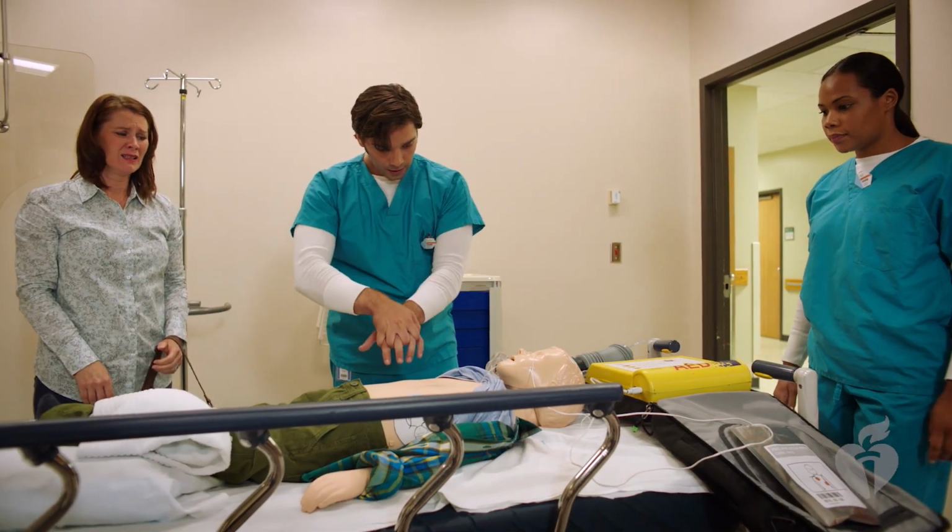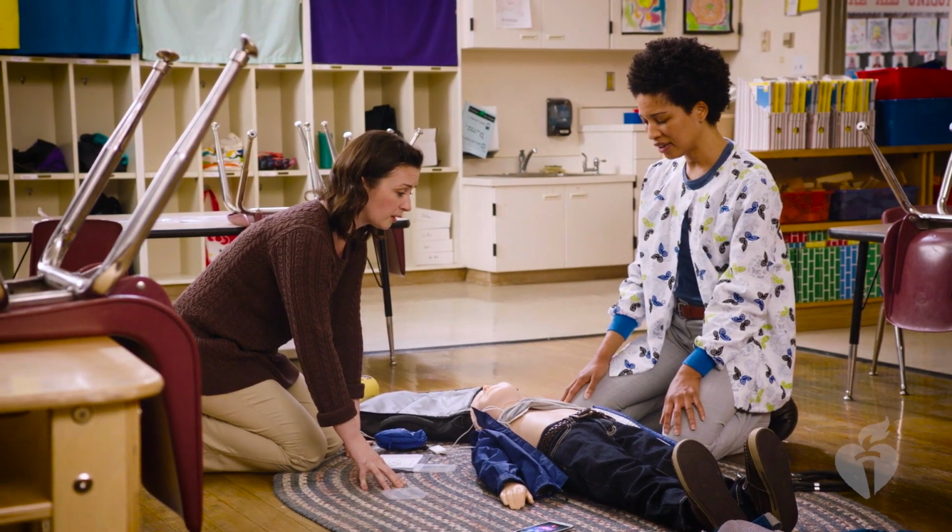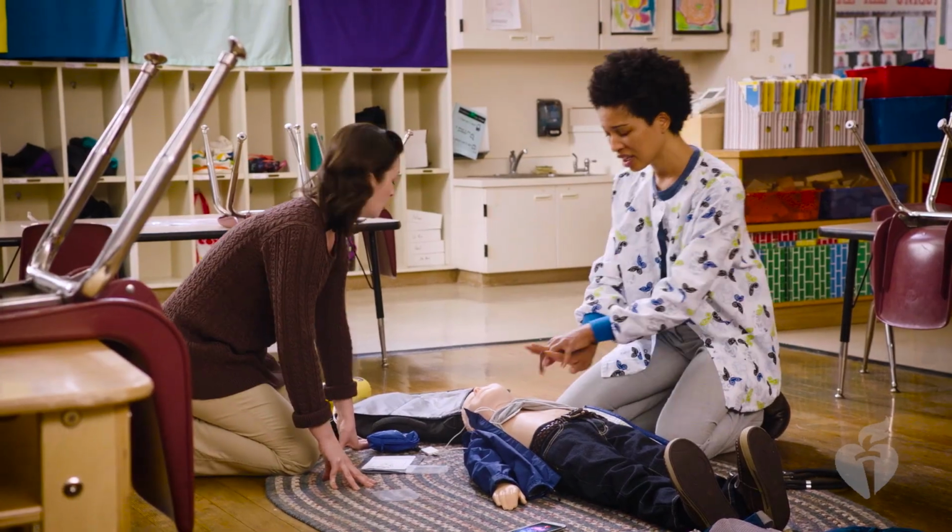Once the AED completes its analysis, if a shock is advised, it will charge. Shock advised. Charging. Do not touch victim. Clear. Most devices will prompt again to clear the child or infant. Some devices, however, will allow chest compressions to be performed during the charge phase. Providing compressions during the charge phase is optimal, but be familiar with the devices you have access to so that you'll know whether to provide compressions during this phase. The rescuer should again repeat the clear command to those nearby and visually confirm that no one is touching the child, not even the person in charge of giving breaths.